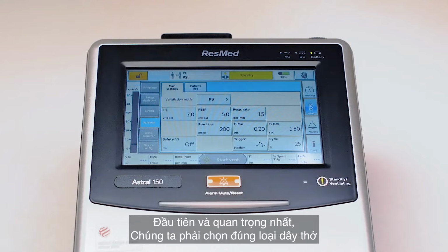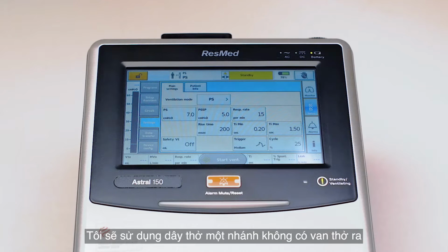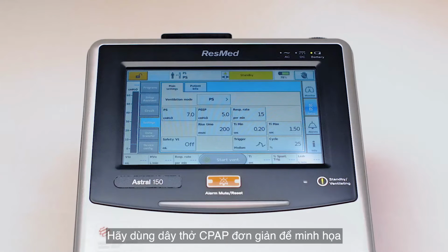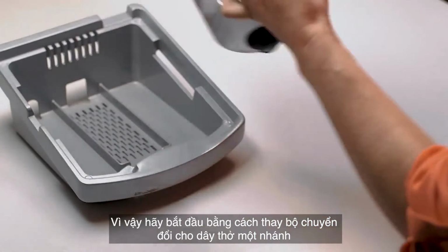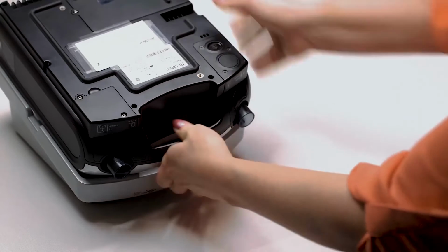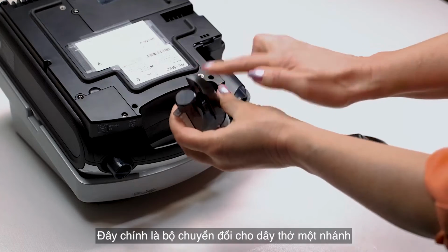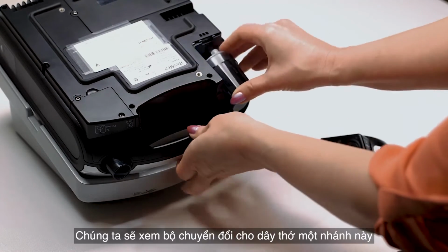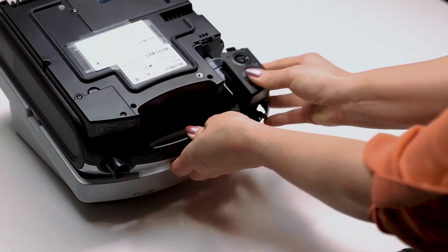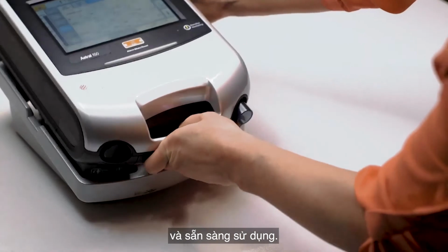First and foremost, we're going to choose the correct circuit. I'm going to use a single limb leak circuit, so basically a simple CPAP tube for this demonstration. You'll also want to have your single limb leak circuit adapter. So let's go ahead and change out that single limb leak adapter. So you can see from the blocked ends, this is your single limb leak adapter. We'll seat this single limb leak adapter. We'll slide that door back on, and we're ready to go.